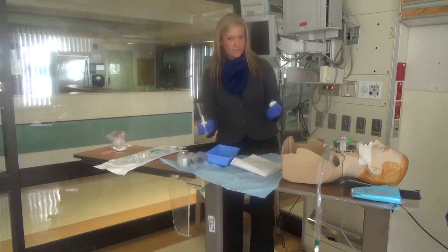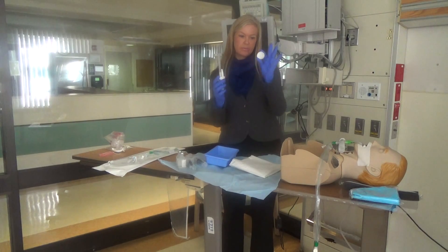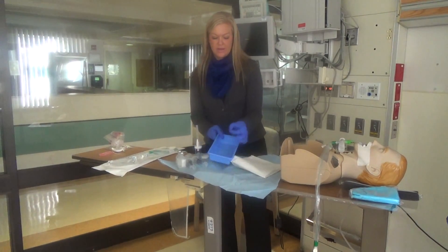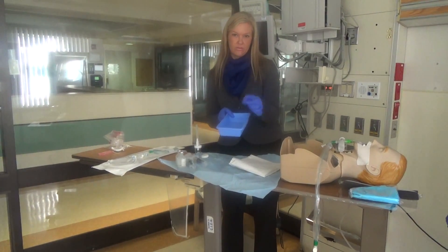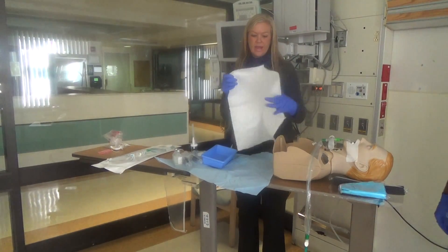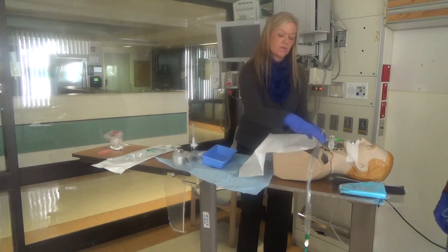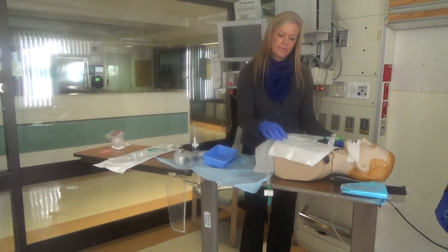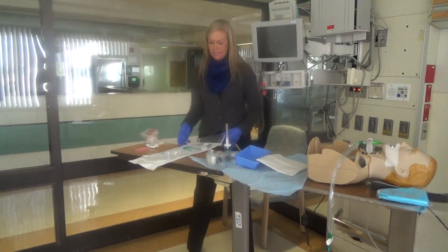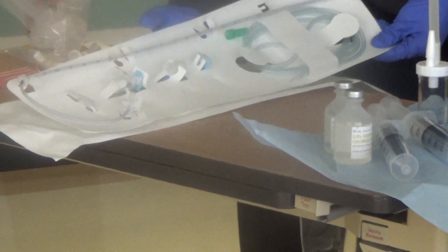At the end of the procedure, if you prefer not to cap your sample in one way, you have the option to take off the adapter and cap it another way. Also included is a needle for your syringe to draw up saline. We also provide a white sterile cover so that during the procedure you can cover the patient. The other items remaining in the package are not needed for this procedure at UC Davis and can be discarded.